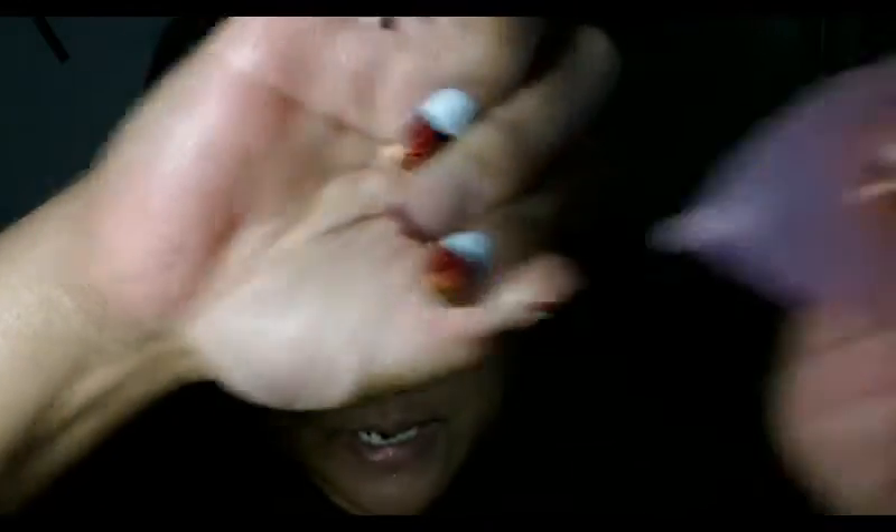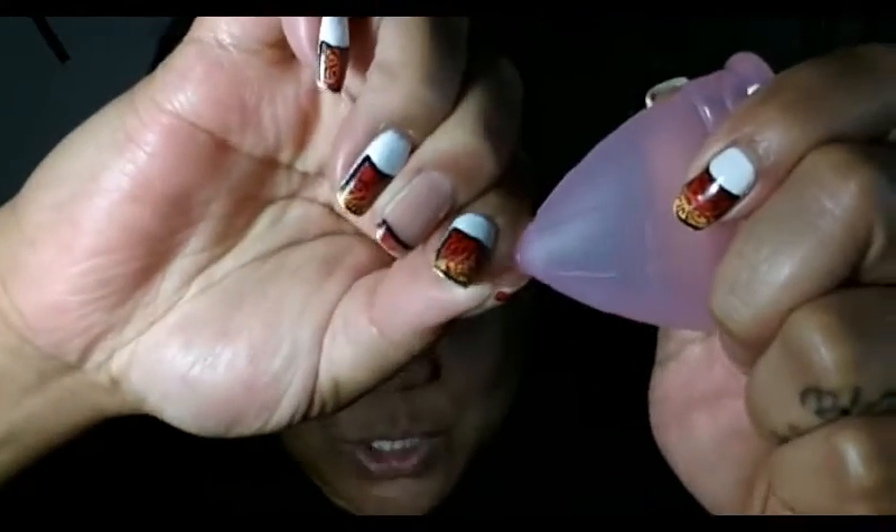So I'm going to start off on their stem here. It's a really, really short stem. I personally really like that because if I was going to keep a cup, I normally would cut the stem off, so having this stem really short is nice for people that don't need that stem. However, if you do need a stem, this is pretty much useless. If I put my hand on the cup and try to use that stem, my fingers just kind of slide right off of it. Having that one little grip ring on it is not going to give you very much grip because the stem itself is so short. So if you do need stems, you probably want to pass on this cup.